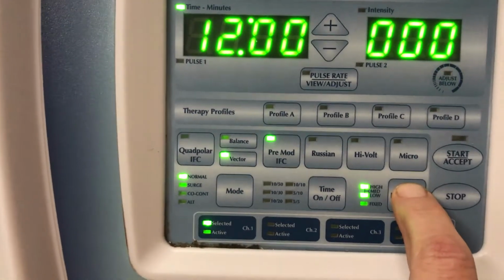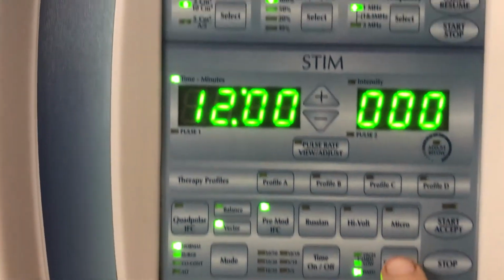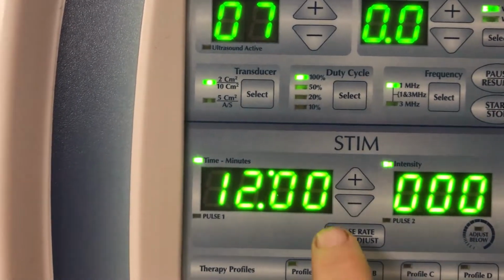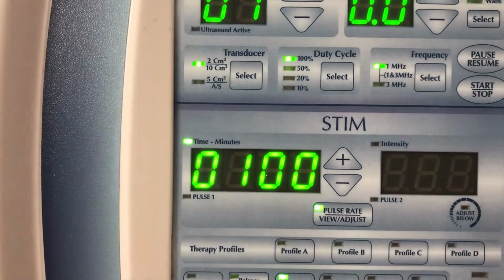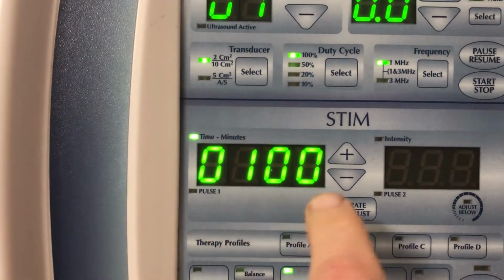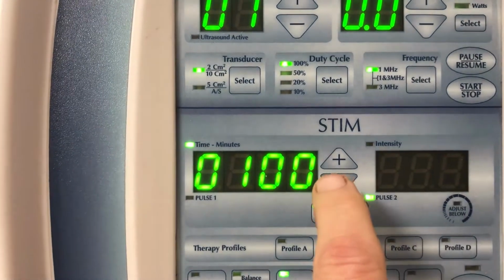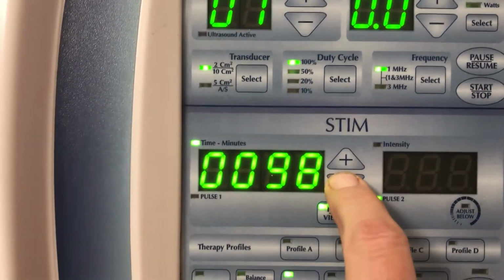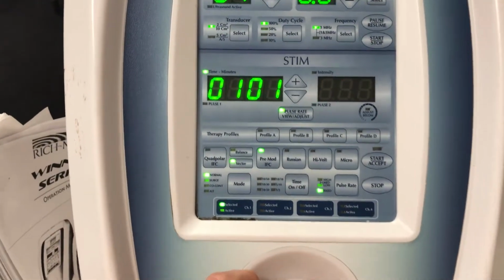Lastly, if we wanted to go to a fixed pulse rate, which we could do, and now we come back up here, we hit this number, again we are at 100. All right. When only one display is being shown, nothing is here, we can change it either from here or we can change it from there, either one.